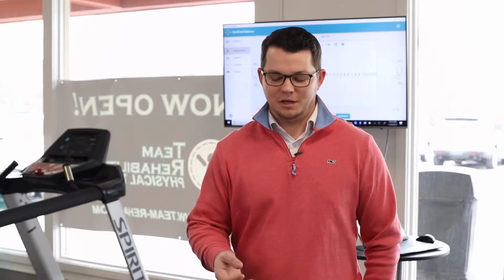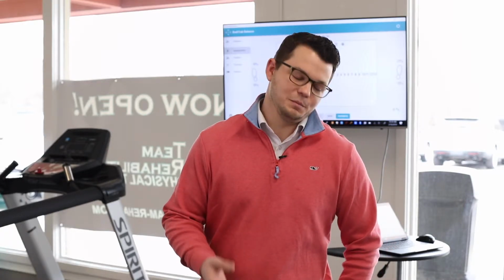Today we're going to talk about BodiTrak 2 balance. The reason that it's changed my practice is it allows me to get objective data for my balance patients that then justifies continued treatment to the insurance companies and to the physician. It's a very, very cool product, and I really want to show you all the capabilities about it today. So come check it out with me.